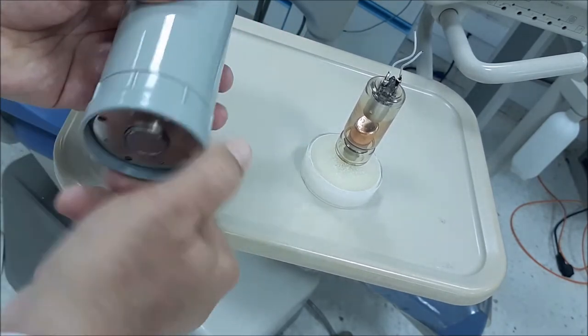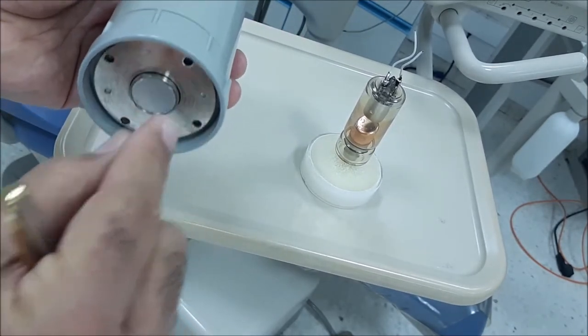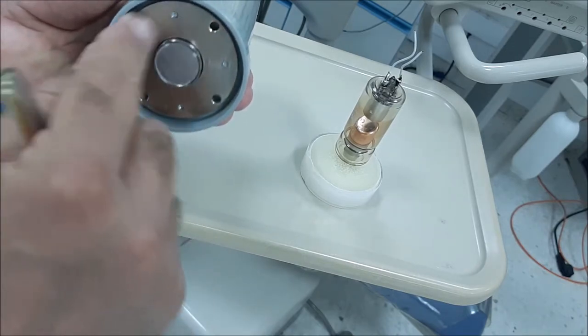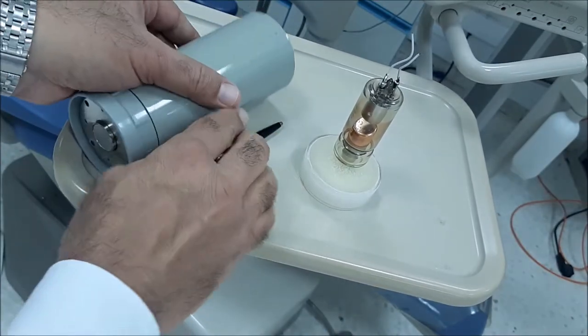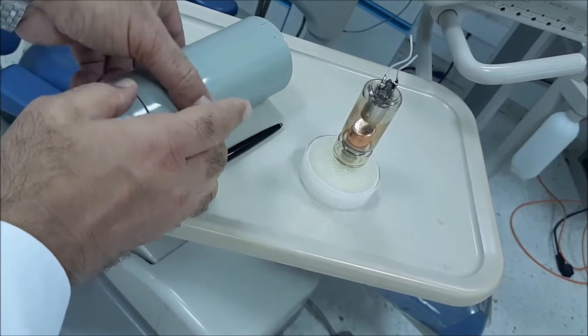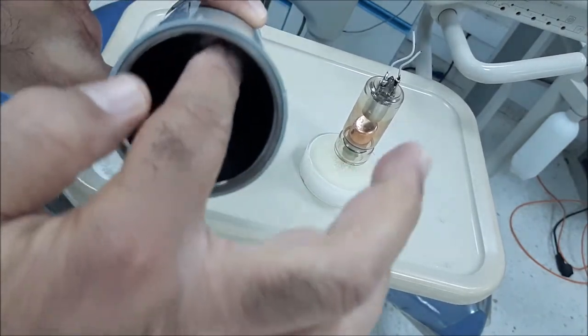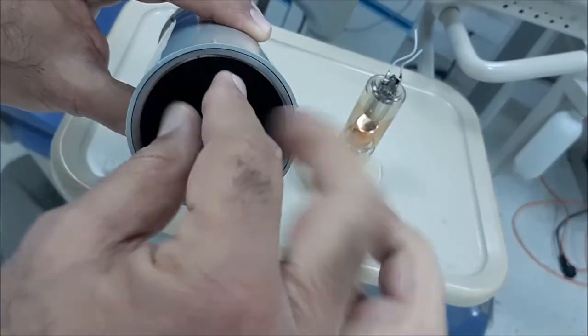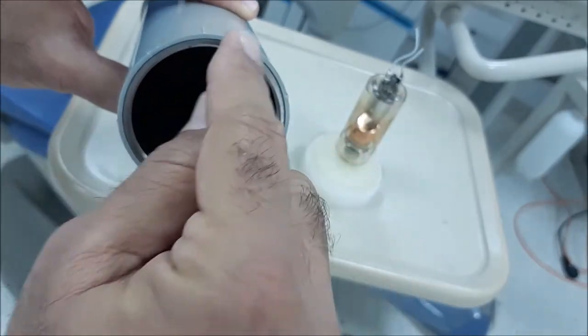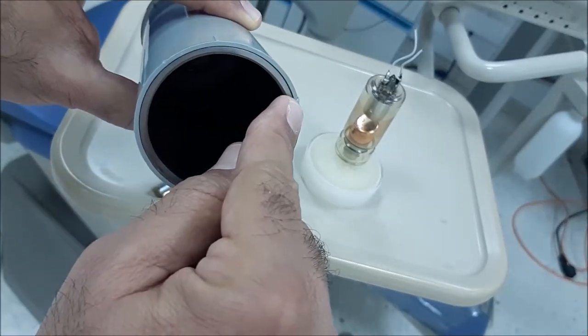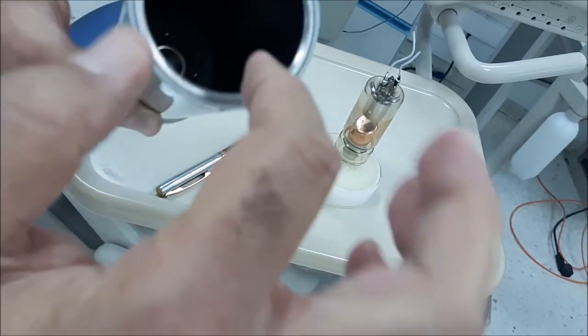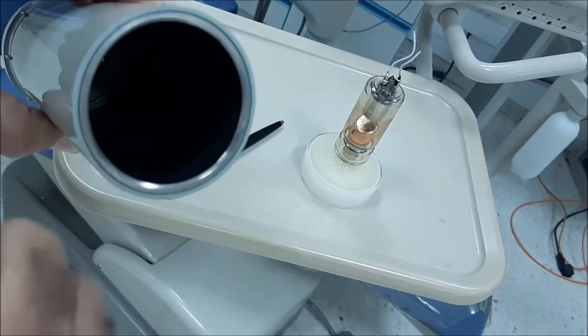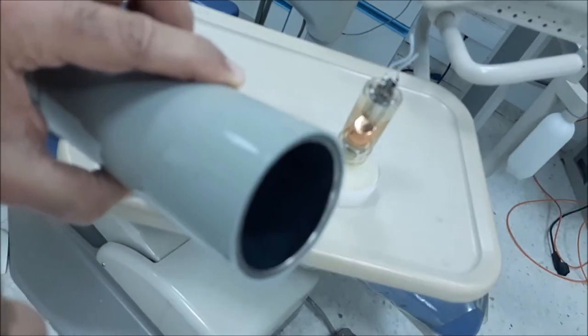When the beam is generated and it is filtered, and then it is collimated, it will pass again into the form of a cone. So what we need is that any x-ray passing in this cone will be not allowed only from this part to exit. The reason of leading the interior side of the cone is that no x-ray passes from here.